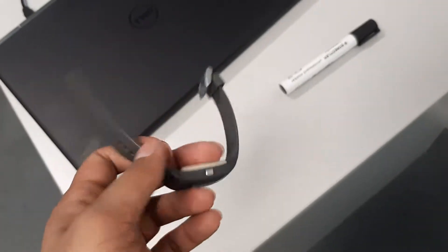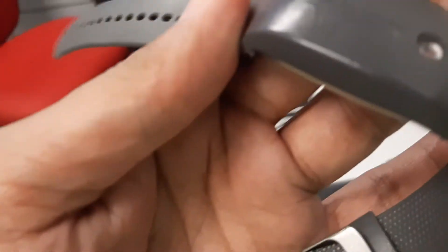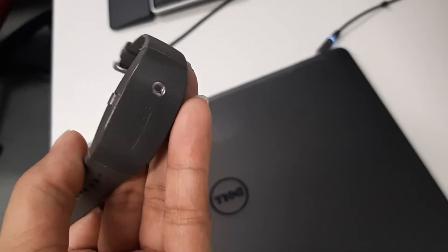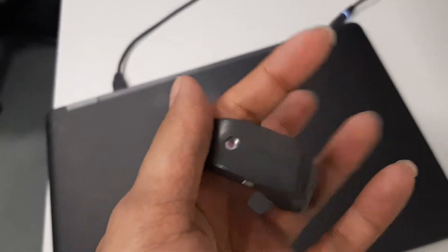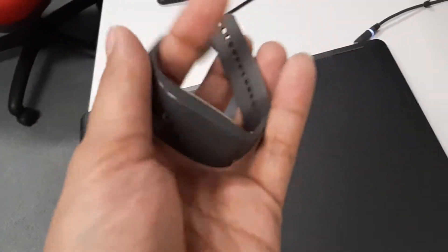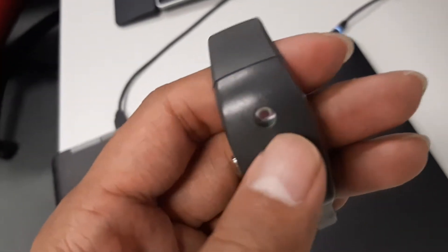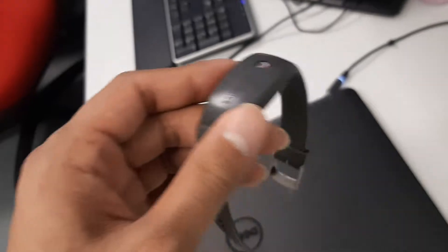In this video I'm going to show you how to connect the Actigraph watch and how to configure it. This is the Actigraph watch, and it is used for collecting the habitual sleep pattern from a person or participant. It records sleep hours using the accelerometer to track movement, and it also records light. First, you need to check whether it has been charged, then connect it to the docking device which is connected to the computer.